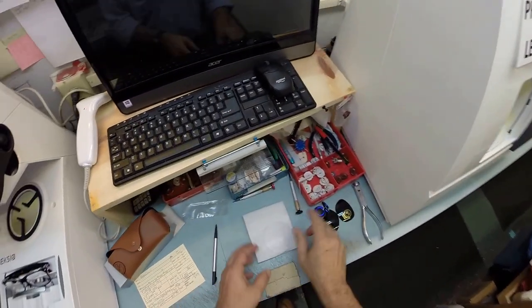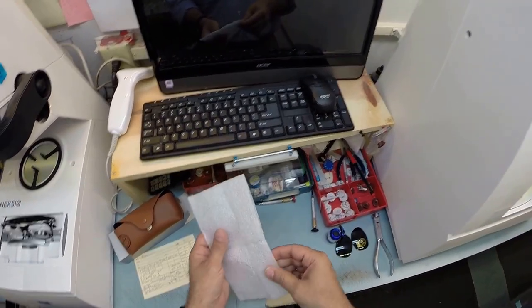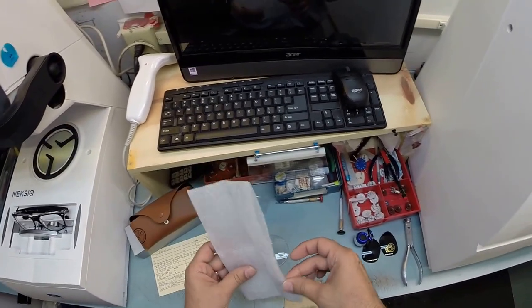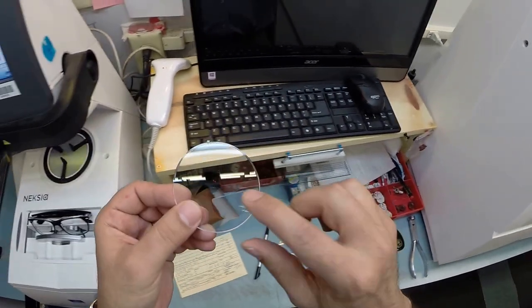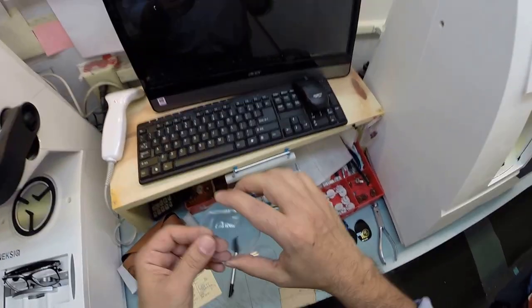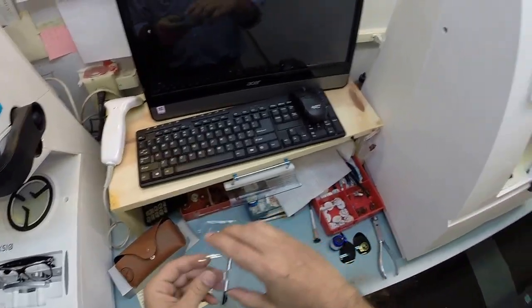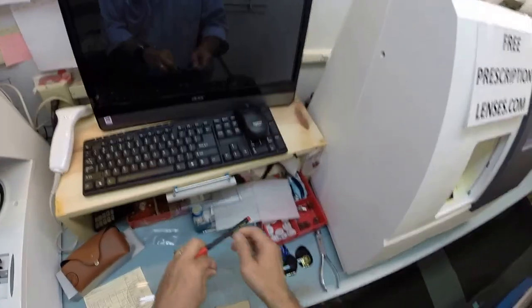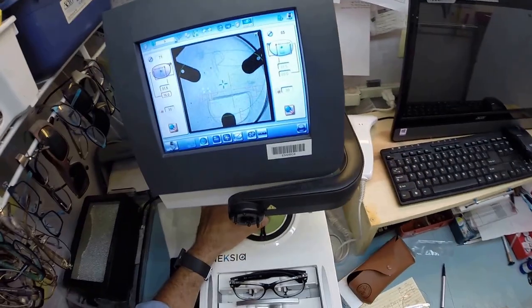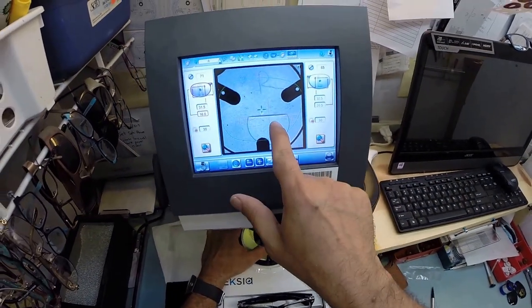Now these are your lenses, the Lentes. Take the first one out, the second one out, and you can see the traditional line-style bifocal. This is the right lens because it's going to come inward, and that is the left. And just so there's no mix-ups, let's go ahead and label that one R. And I'm going to put it onto the platform. You can see it much better now, that bifocal.